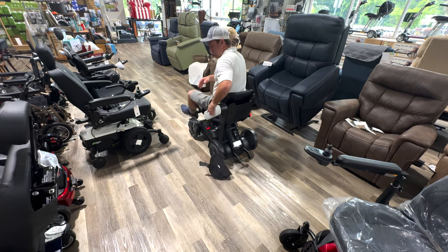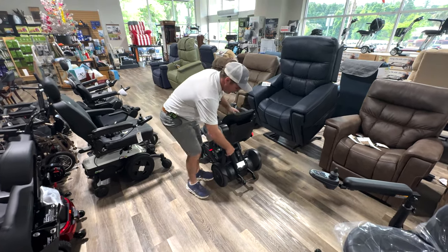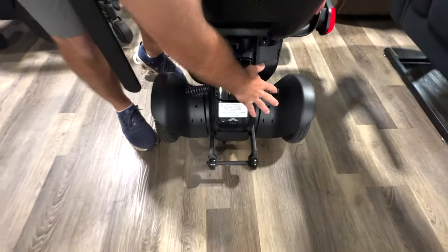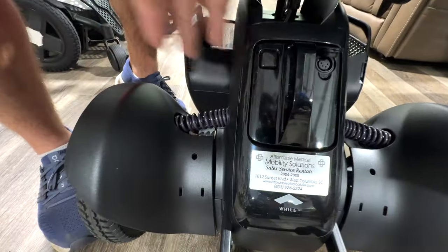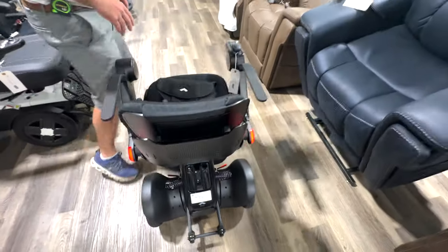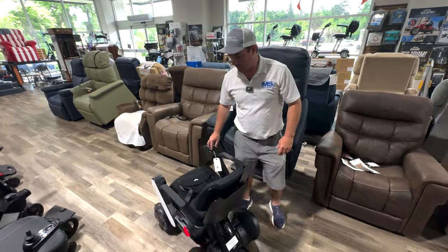Here's how you get out of it. Also, if you look back here, you have independent shock absorbers. This is really cool. Very high-end everything on this — motors, bearings, and the technology that comes along with it.